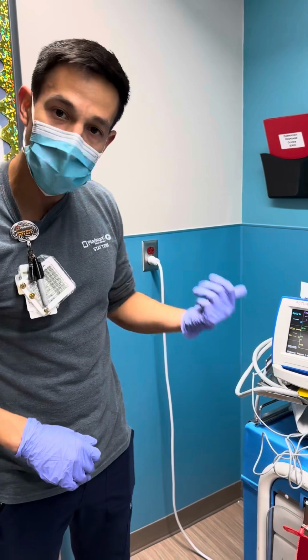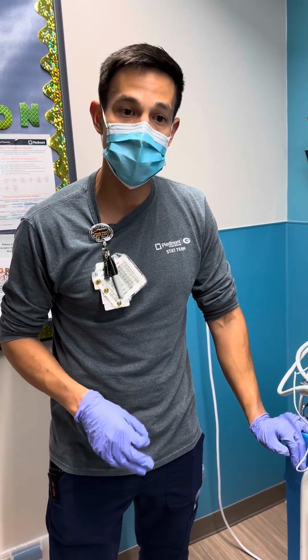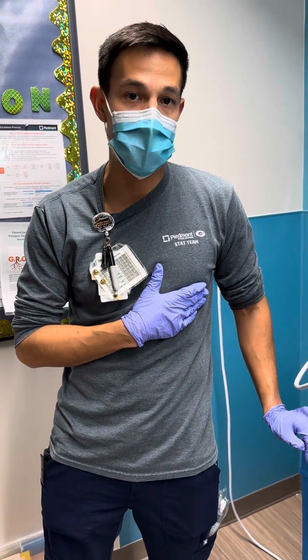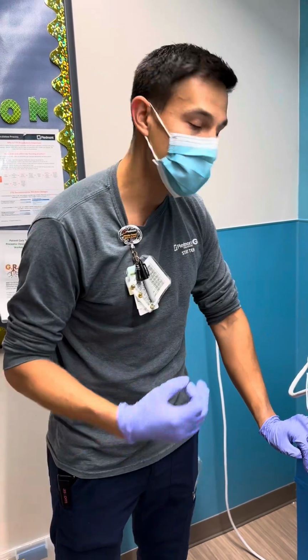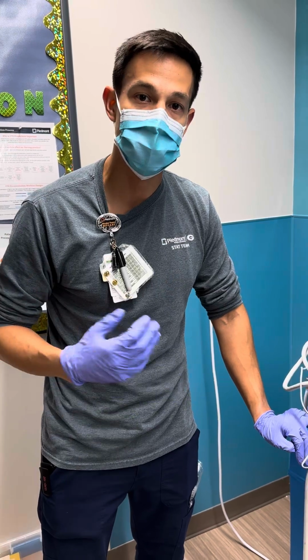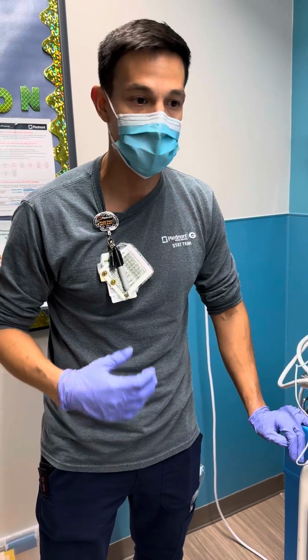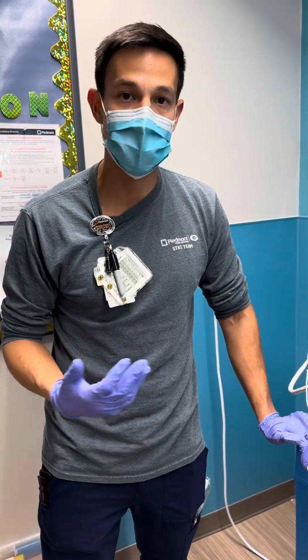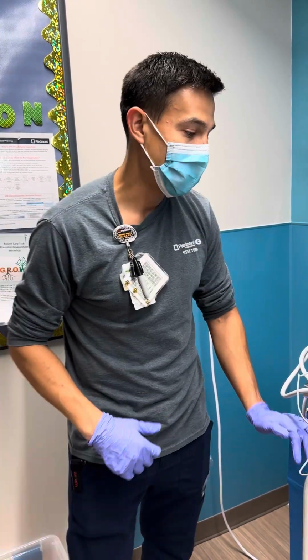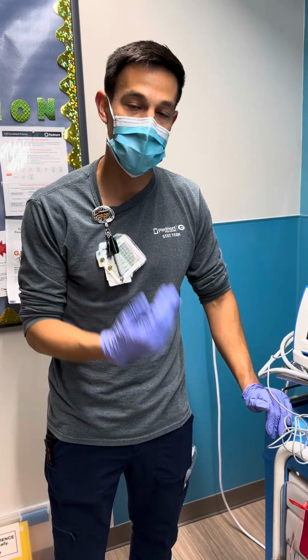Another excellent use for end-tidal CO2 is detecting what may be the first sign of ROSC for a patient. Obviously, that patient's intrinsic heartbeat is better than us compressing on the chest. So if we see a dramatic rise in end-tidal CO2 at any point during cardiac arrest CPR, we can think to check for a pulse. I'm talking about a value probably greater than 50 here. If we see a value of 20 go up to 50, we want to check to see if that patient has a pulse.